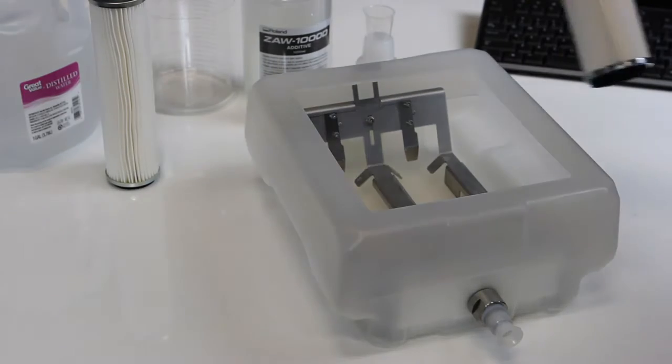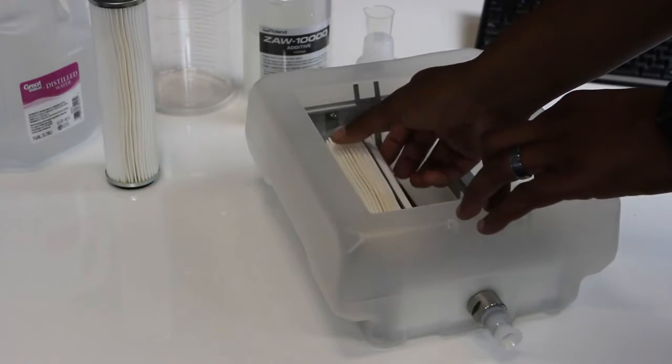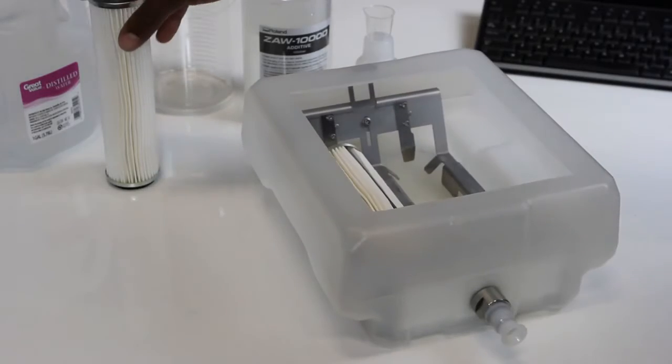Insert the coolant filters. Be sure the protrusion of the filter is facing the side of the tank with the coolant tap.